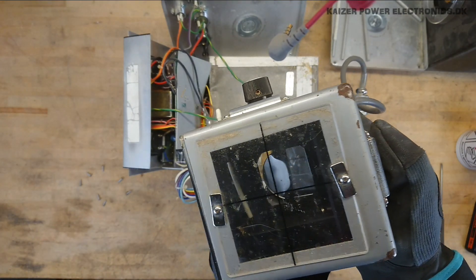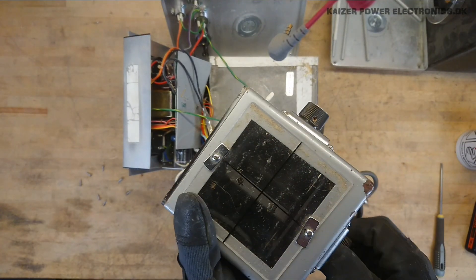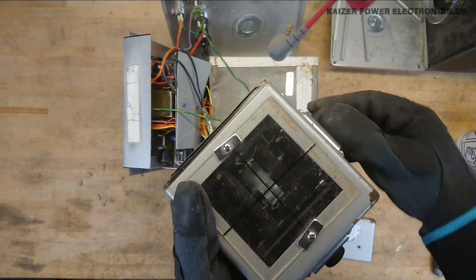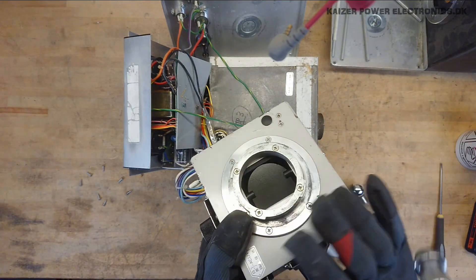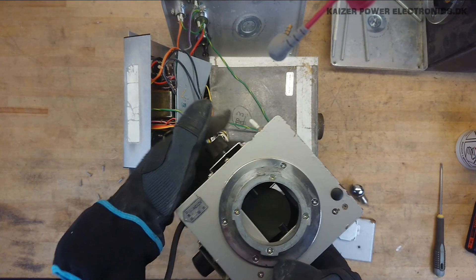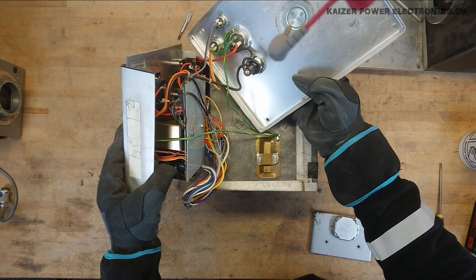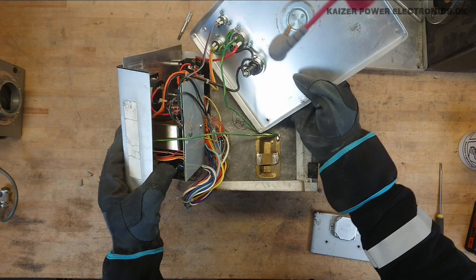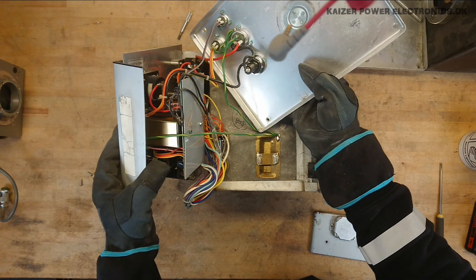That's quite funny to see. Other than that, the collimator is just two moving parts here to shape the field. Not much else to say about this. It just takes AC 12V for the bulb. We have black and red wire for the AC input voltage. We have yellow and orange which I presume is the trigger.